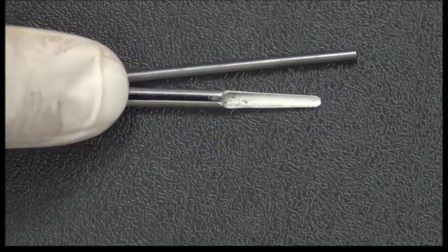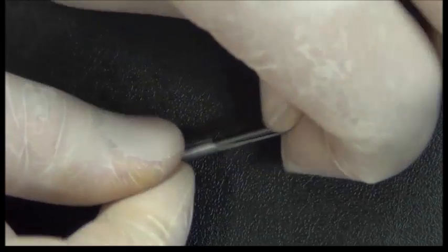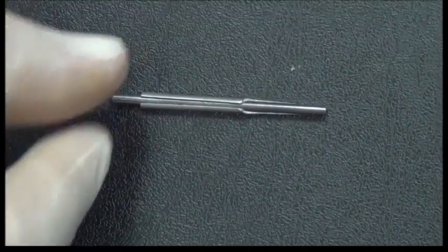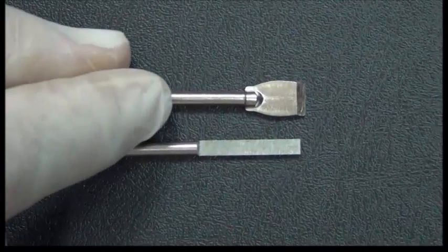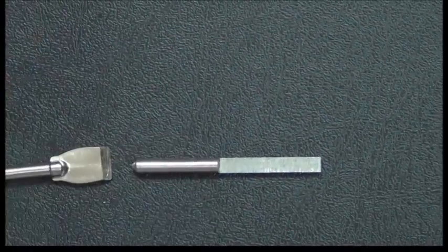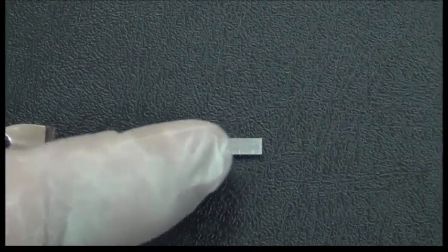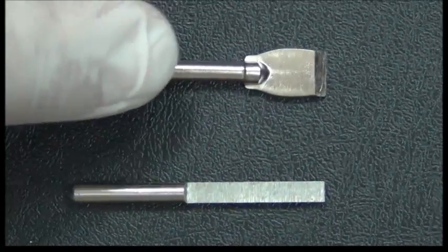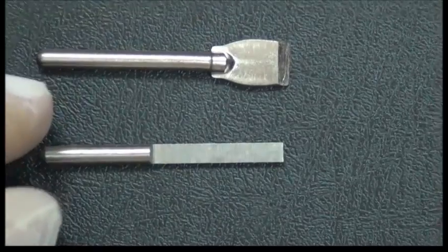This is the sheath. It's a metal sheath. It is used to reinforce the carbon marker during the process of surveying and to support it, preventing it from fracture. The third instrument is the wax trimmers. Usually one wax trimmer comes with each surveyor. There are some wax trimmers where the knife or the sharp edge is on the side. There are other wax trimmers where the sharp edge is on the end. So this works in a vertical motion, while this goes around the cast in a horizontal motion to remove wax.